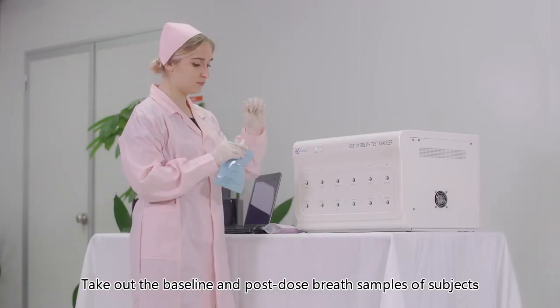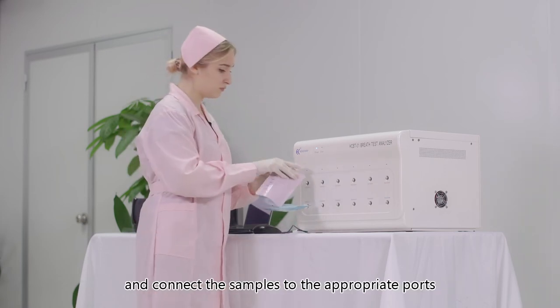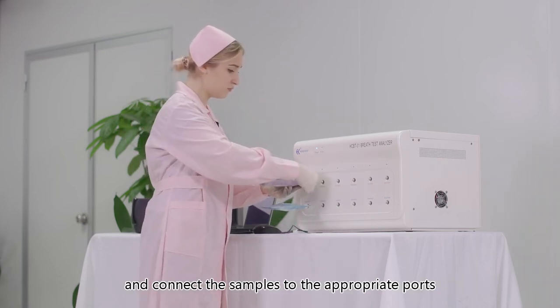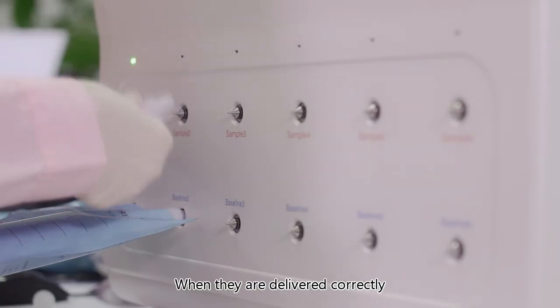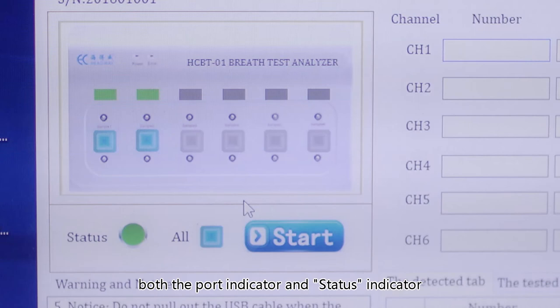Sample testing: take out the baseline and post-dose breath samples of subjects and connect the samples to the appropriate ports. When they are delivered correctly, both the port indicator and the status indicator on interface of operation software will be illuminated.